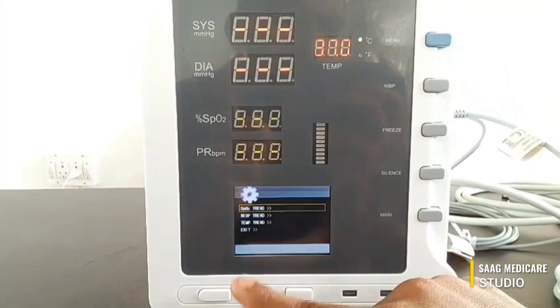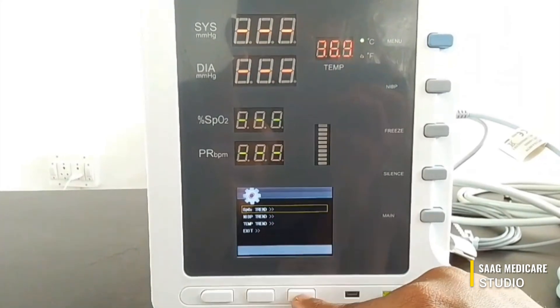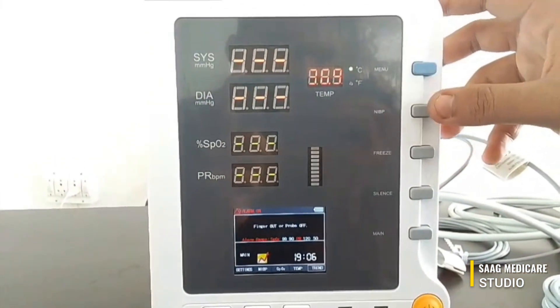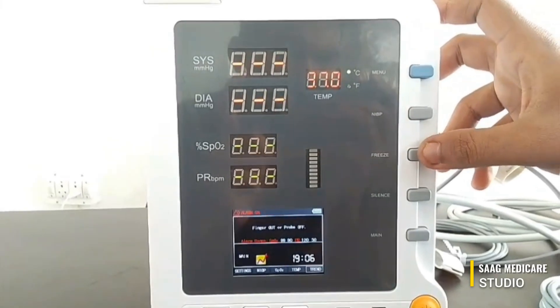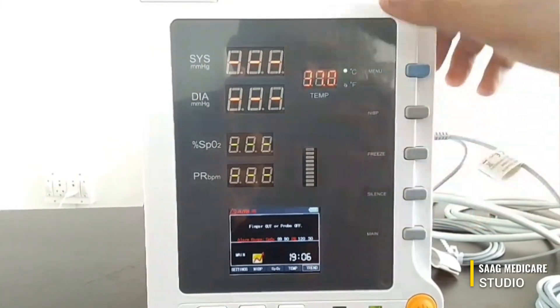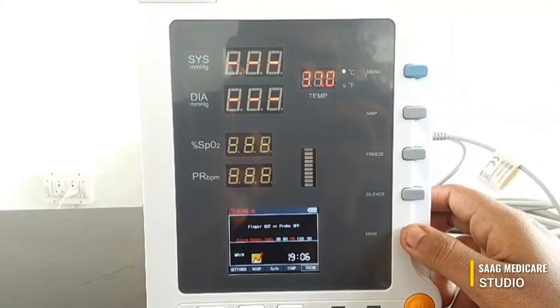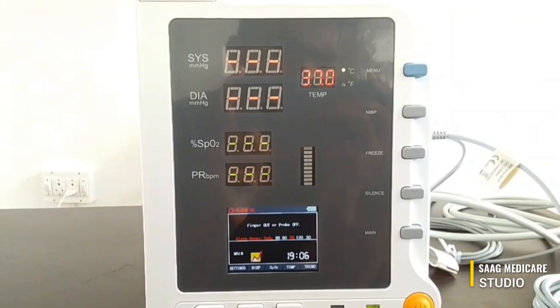You can also see the trend graphs for SpO2 trend, NIBP trend, and temperature trend. You can start your NIBP measurement by pressing the NIBP button, and you can use the freeze button. You can silence the alarm, and if you are in a menu and want to return to the normal home screen you can do so.